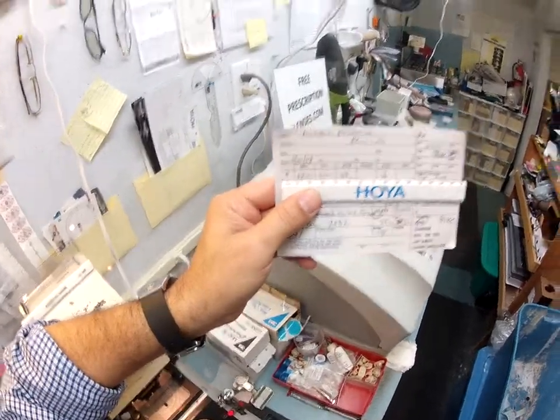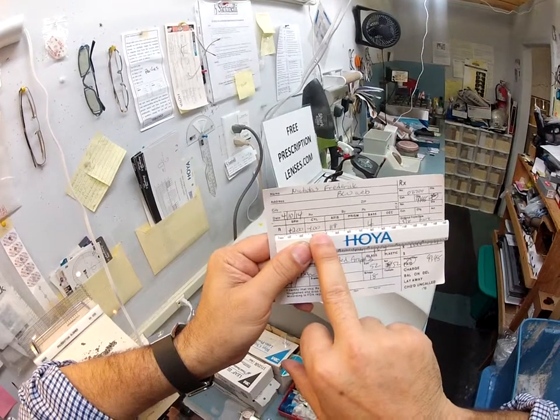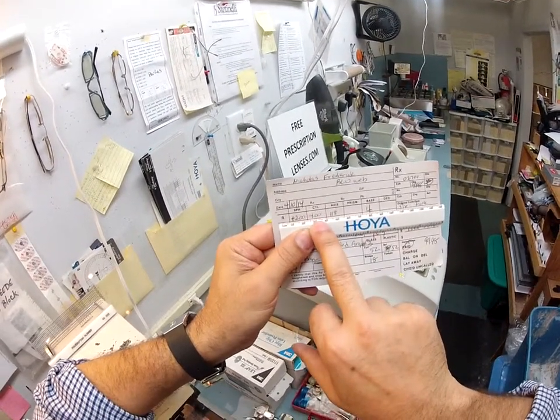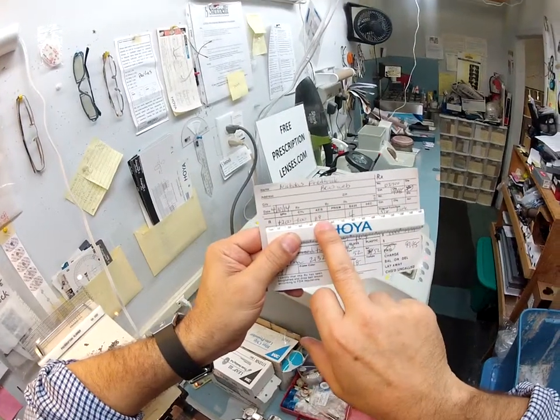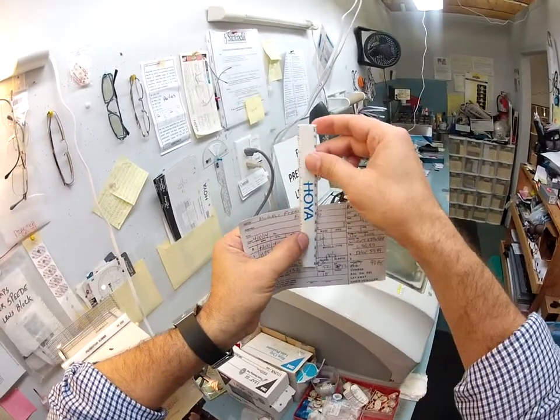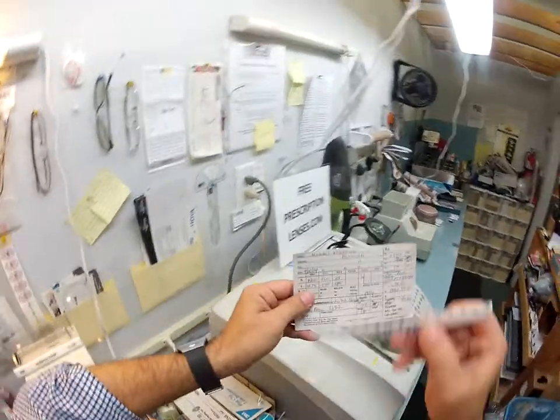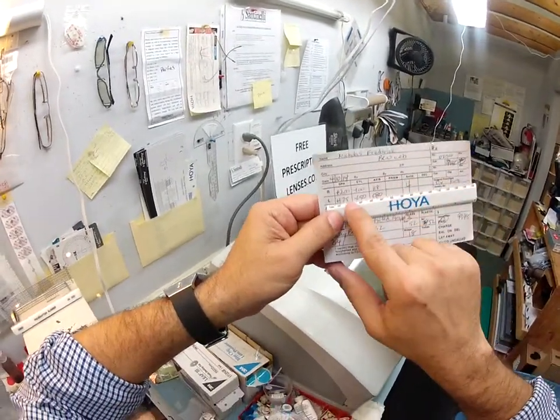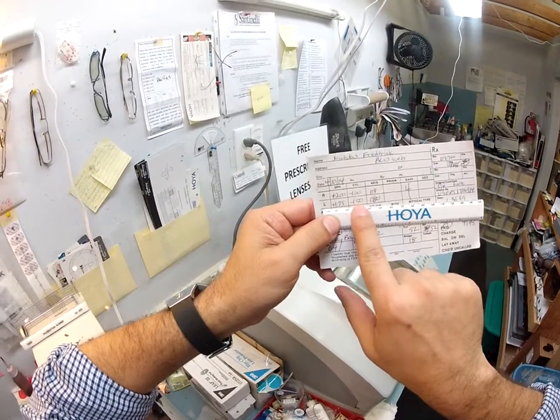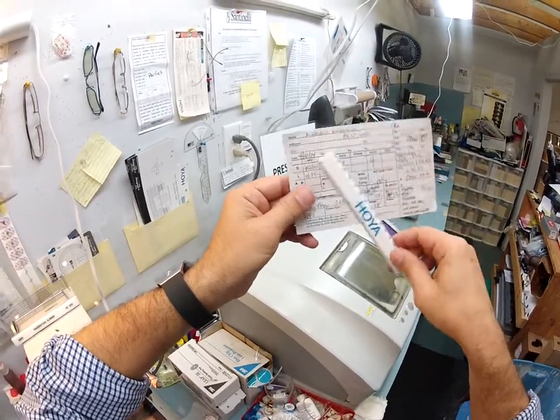Astigmatism fluctuates — everyone freaks out over that. But you have 4 steps. The 118 axis — if this straight edge were 0 to 180, with 90 being in the middle, 118 would be about right there. So if this were the fine-tune knob, that is what we would be doing, fine-tuning it to 118. The left eye needs less magnification — it's only a plus 175, so you only need 7 steps of correction. However, you have 6 steps of astigmatism correction, and then it's at 80. If we were back at 90, we'd turn that knob back to 80 to make everything nice and clear and crisp.